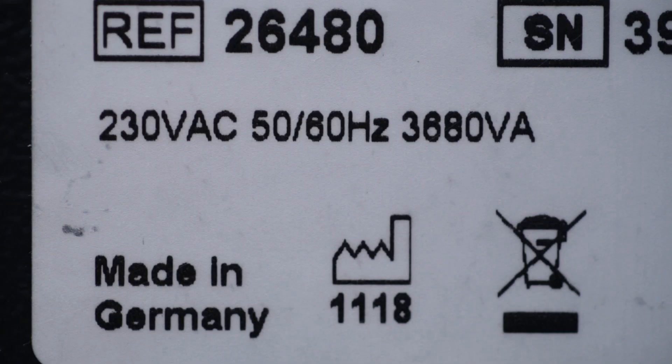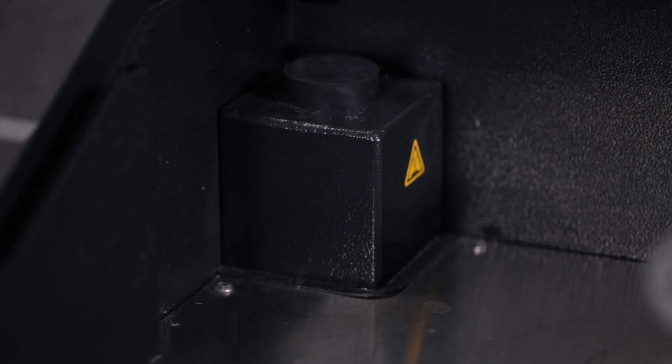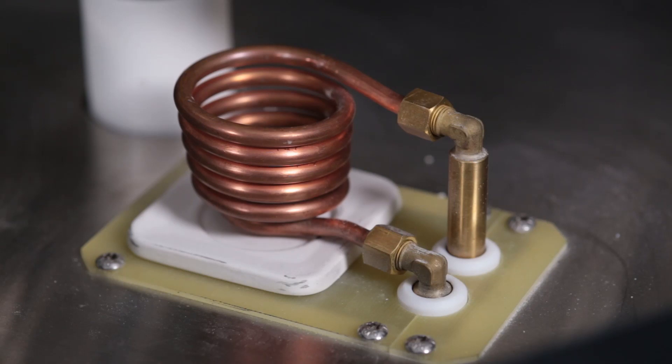Possible voltages are 200, 230 or 240 volts. The device itself has an integrated cooling system, providing for up to 50 casts in a row with no delay.